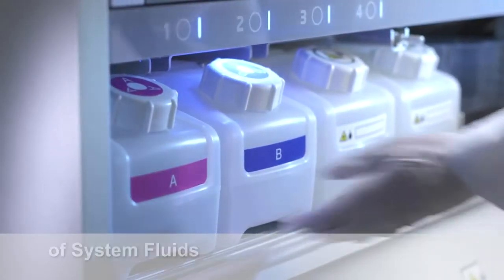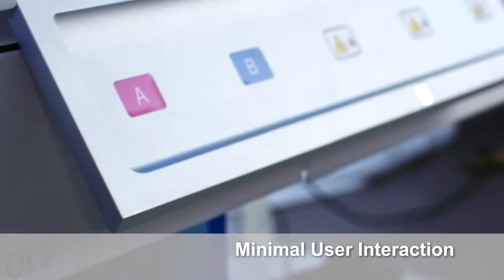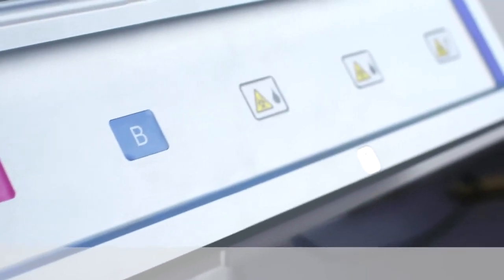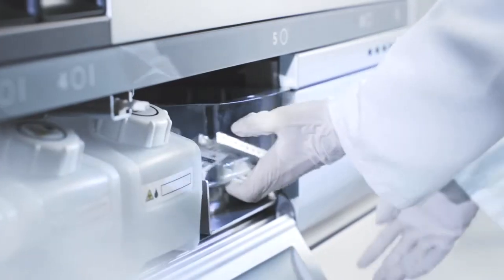The loading and unloading of washing solutions and waste is easy, and allows for minimal user interaction. The instrument also offers the possibility to drain liquid waste directly to the lab drainage system, maximizing its autonomy.